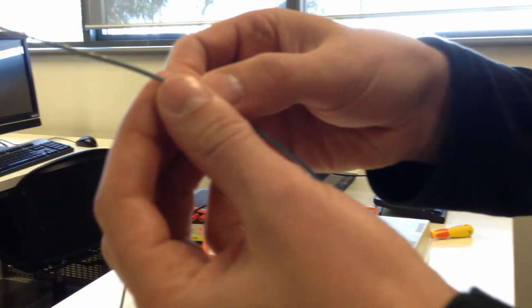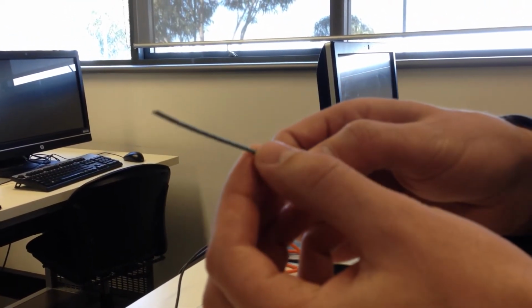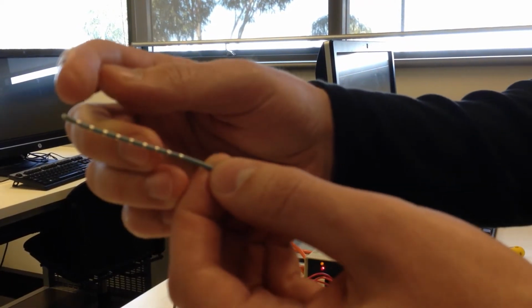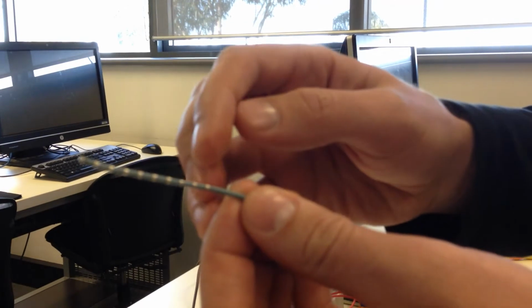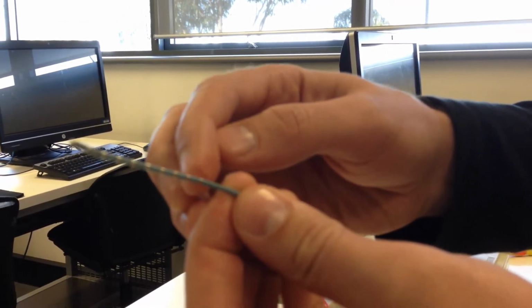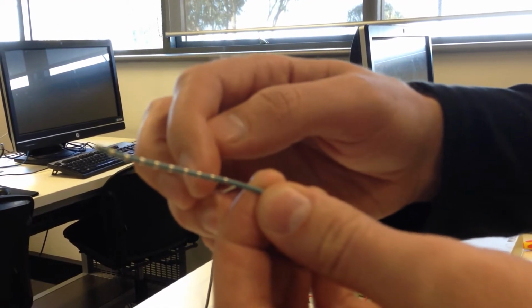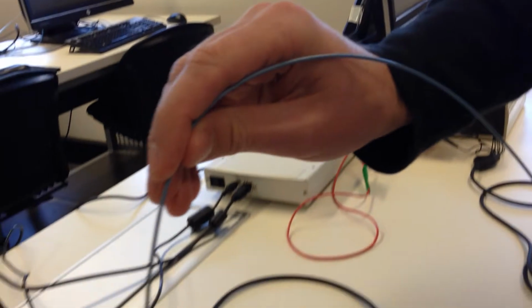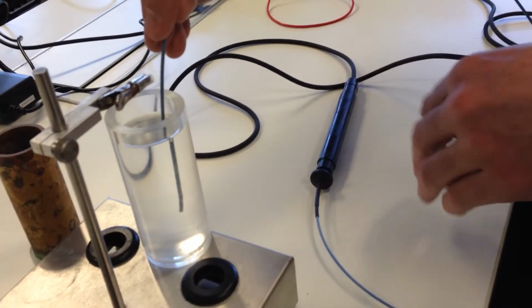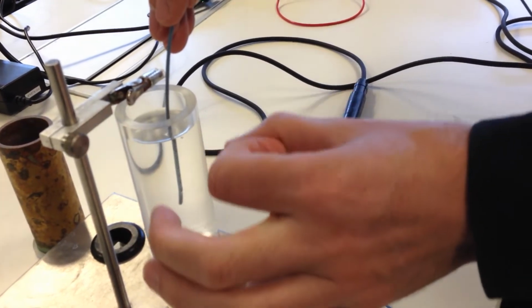This is normally inserted into the body to estimate the volume of a chamber in the heart, like the right ventricle. It has one electrode at the tip, that's where the current will be injected into the ventricle, and one electrode up here at the 10th electrode, and it has 8 measurement electrodes down the length in between. Normally that will be put into the chamber of the heart, and we're trying to use it to estimate little cylindrical segments of the heart.